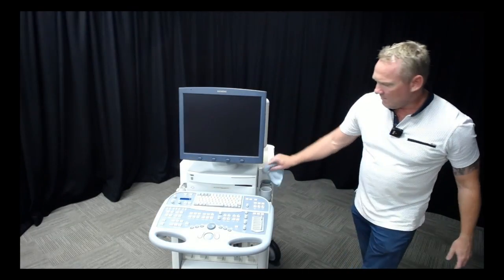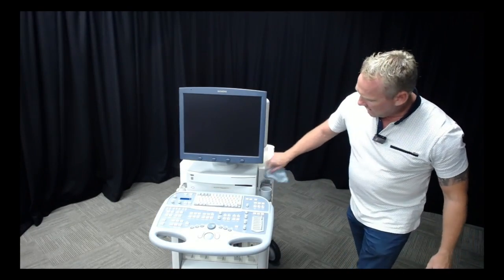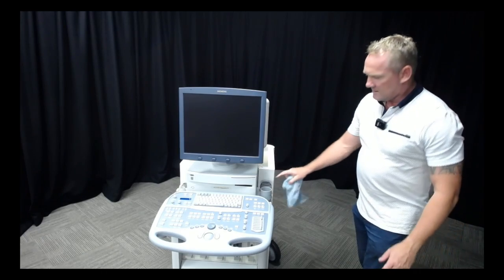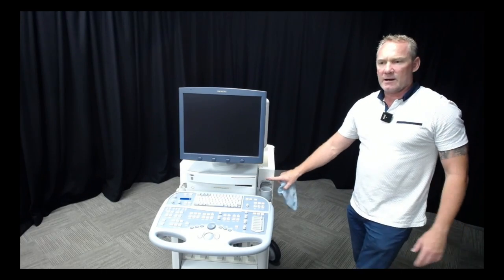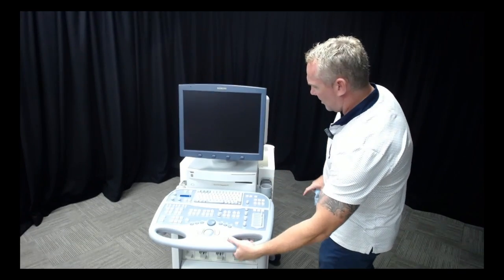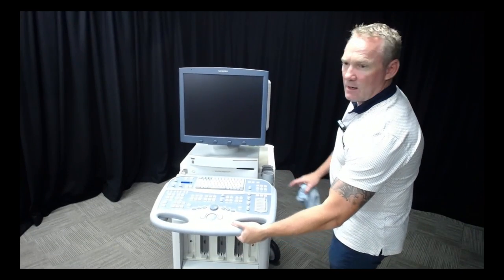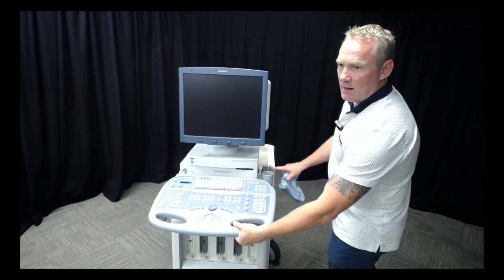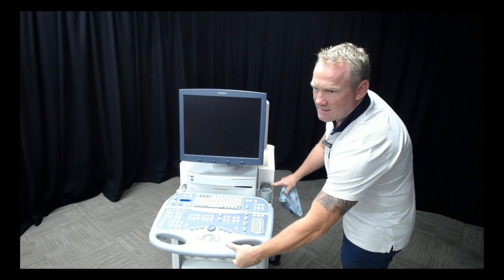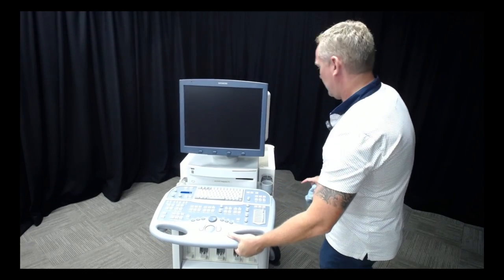I'm going to lift up the console and make sure I'm polishing the back of the machine along this frame where the rear is normally covered up by the console. We make sure we drop that down so we can clean in there as well.